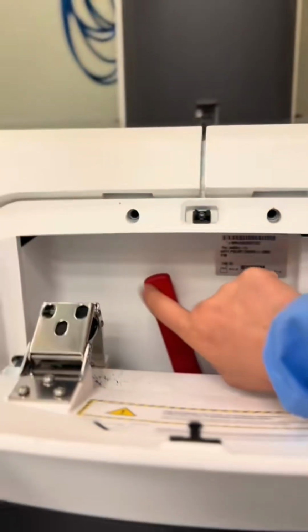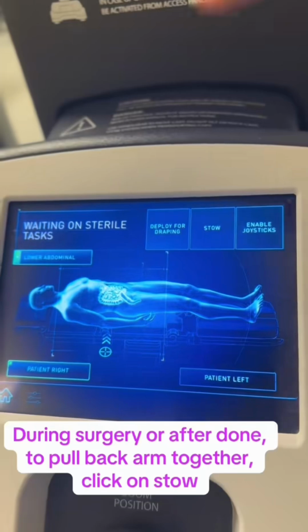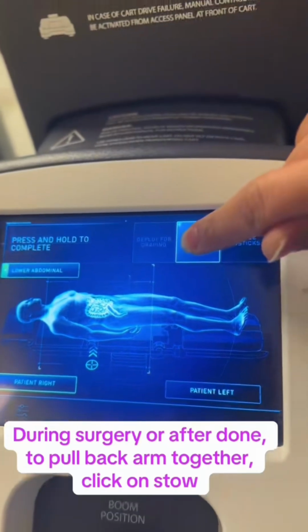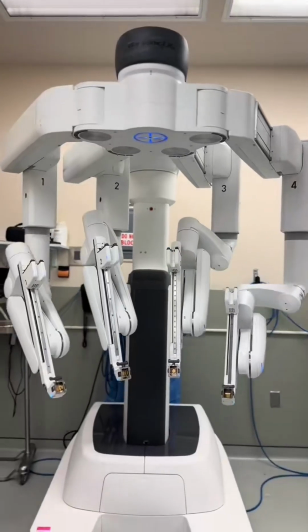So in the middle of the case or at the end, when the robot is disconnected and you need to put the robot together, click on stow. Now the robot will adjust its arms and boom accordingly.